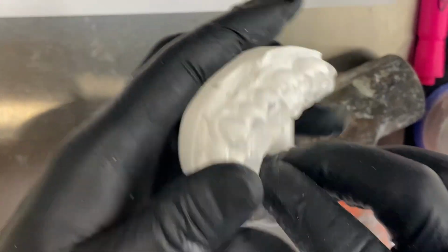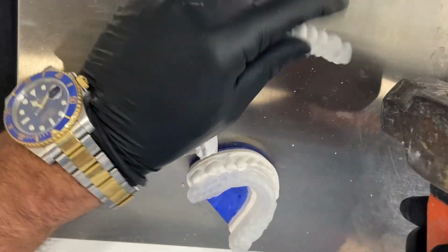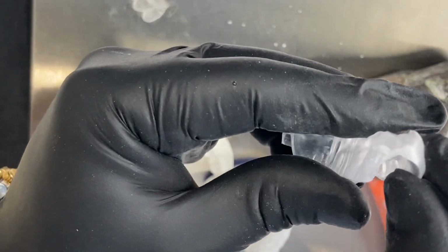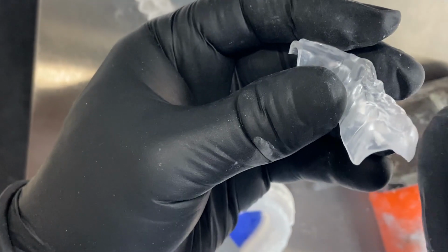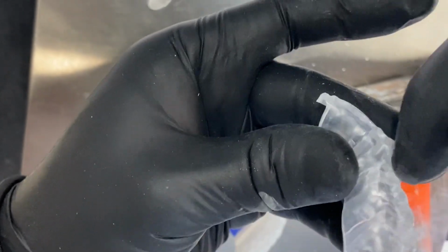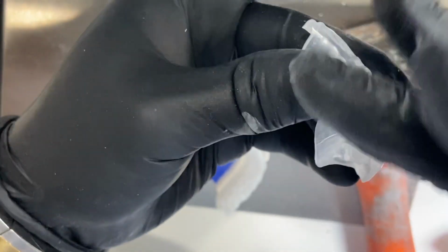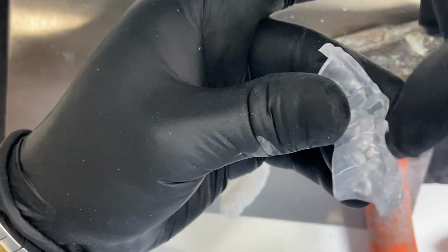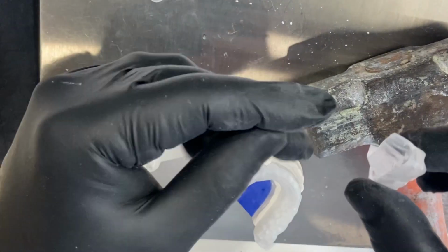But if the orthotic is out, and this one I just broke it right before, yes, it's going to have more fragility because the walls are going to be thinner. Also, something we need to consider is that we have a thickness that goes around the wall, but in the middle fossa here, technically there is less thickness because we're not making flat planes. So we're going to have anatomy that makes it fragile. So that's the second point.